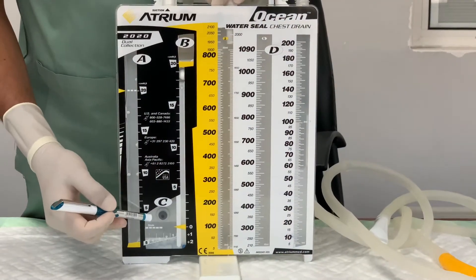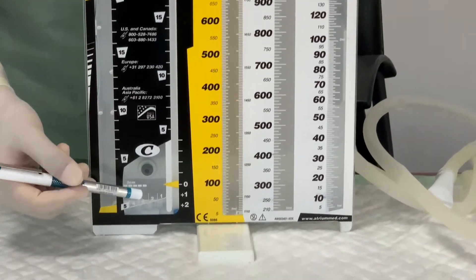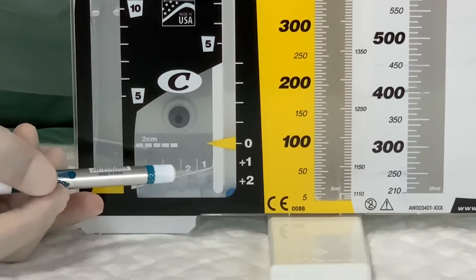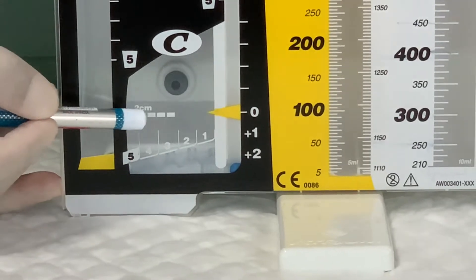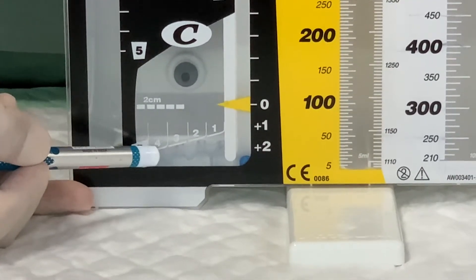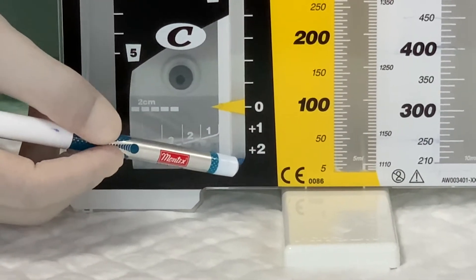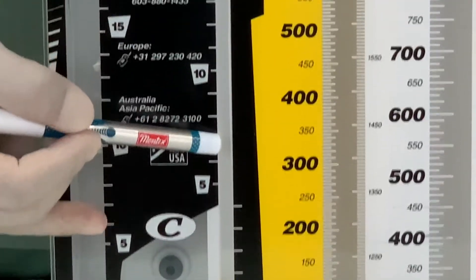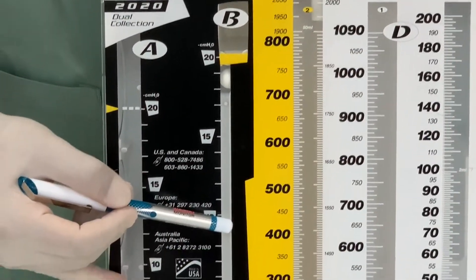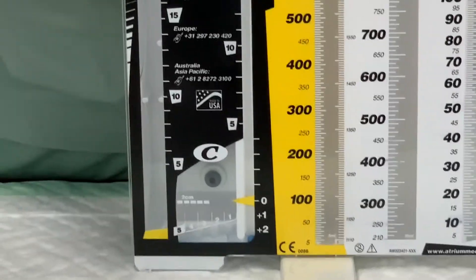The next important chamber is the water seal chamber. We fill this with water to create a barrier between atmospheric air and the patient. The nurse's responsibility is to pour water to the two-centimeter level before connecting to the patient. Once the water seal chamber is filled, the ball present inside will start floating upward. This is called the calibrated water seal column, and the ball level provides important indications which will be explained shortly.